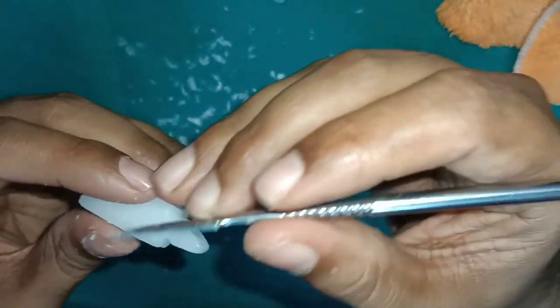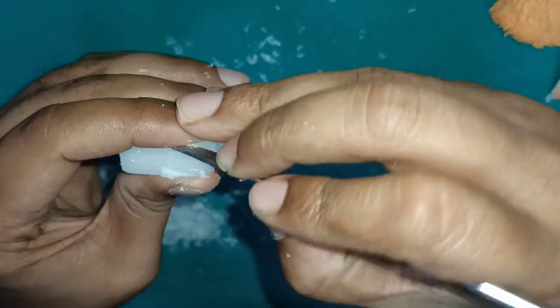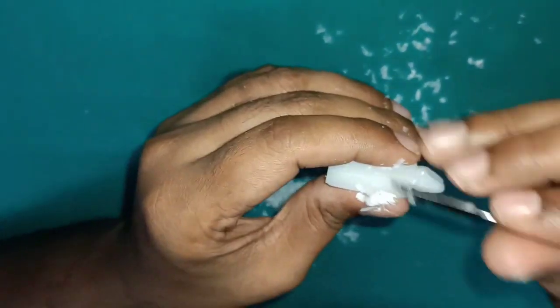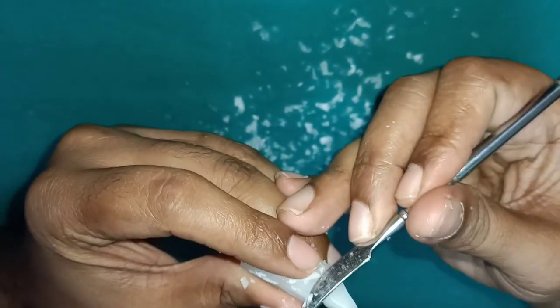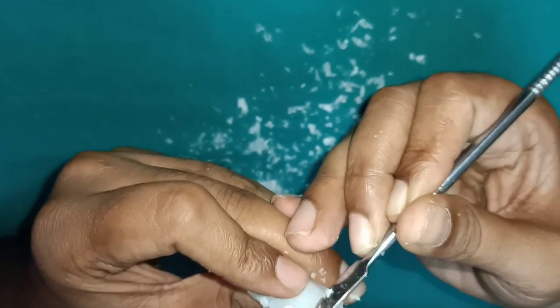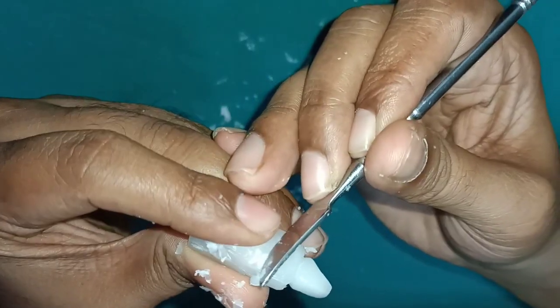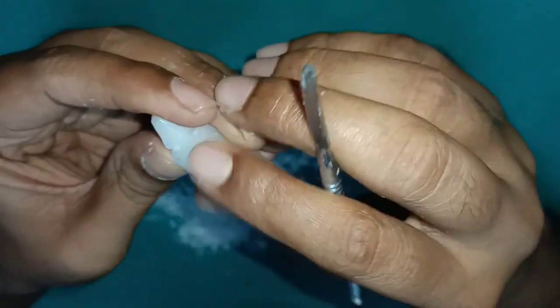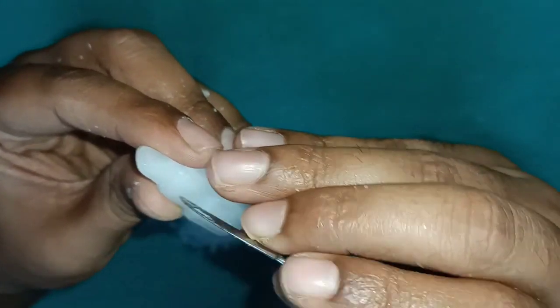Once the initial work is done on the mesial aspect, move on to the distal one. Same thing, remove the wax; so much excess wax you are supposed to remove. Slowly hold the carver in a slanting position and carve. The root portion is very delicate, so make sure you don't make it too thin or else it will break. Now I have done the carving from the mesial and distal portions. To get the labial and lingual, I have to redraw the outline for the mesial and distal, then carve from labial and lingual till you reach the outline and finish the overall carving of the root portion of the mandibular incisor.